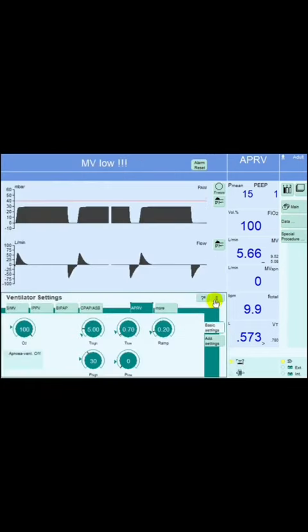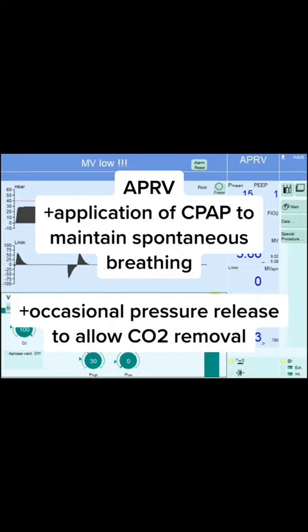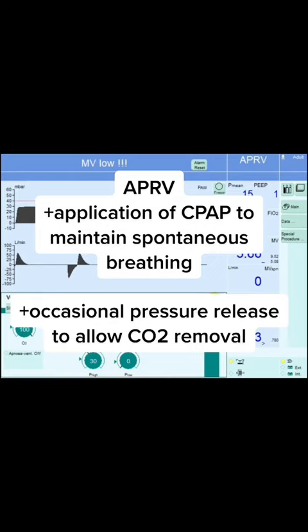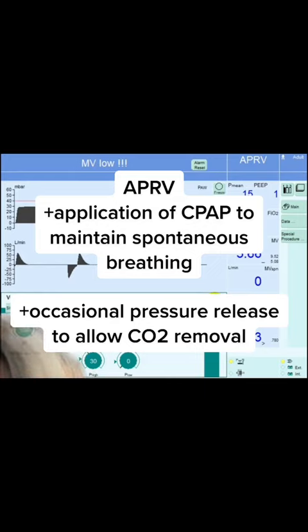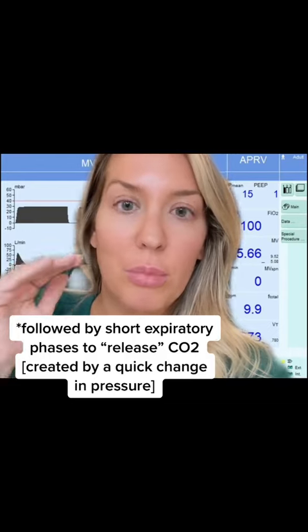The definition of APRV is an application of CPAP to maintain spontaneous breathing with an optimal FRC for alveolar-capillary gas exchange, with the addition of an occasional pressure release to augment CO2 removal. APRV can be thought of as a mode that provides a high level of pressure-supported CPAP breath that allows spontaneous breathing to occur.